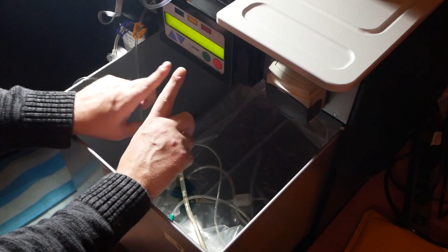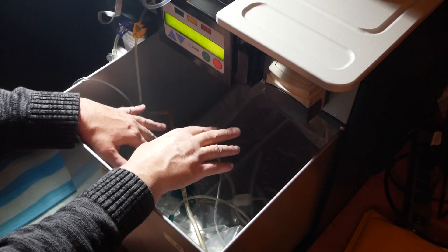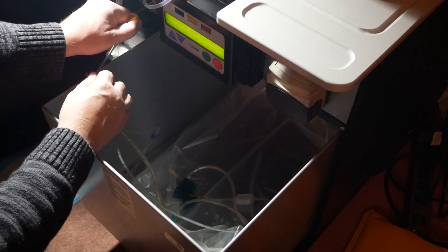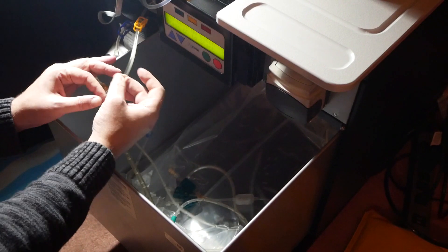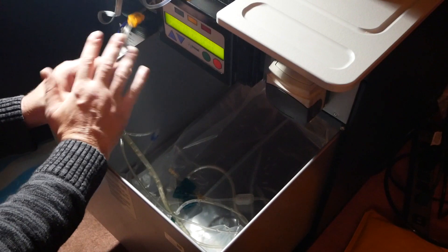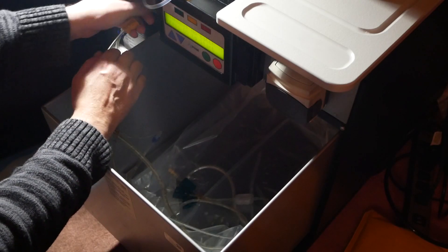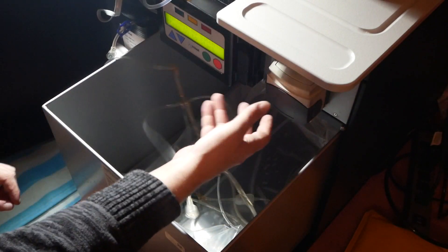We've removed those lines from the machine - everything is just sitting in here. The only thing left to pull is this orange line, so go ahead and clamp it. It doesn't usually spray anything out, but if there's still liquid left in this line it could come out - it's just the water line. To keep liquid off any of this electrical stuff, clamp the line and about a turn and a half and it pops right off.